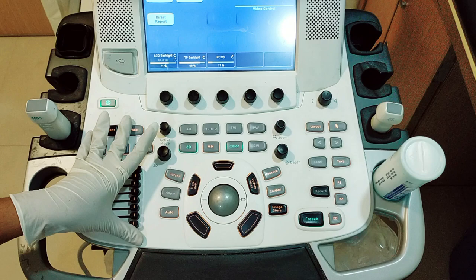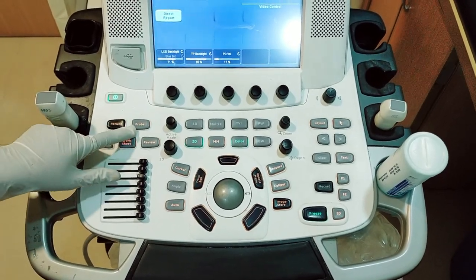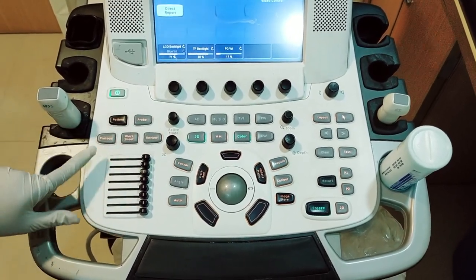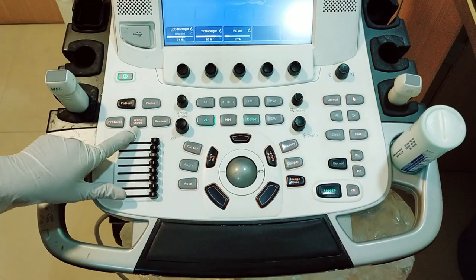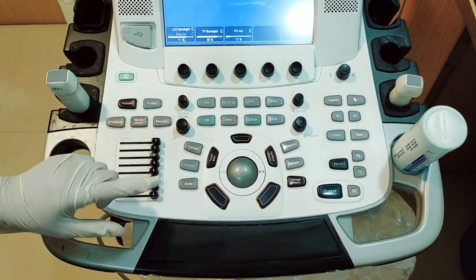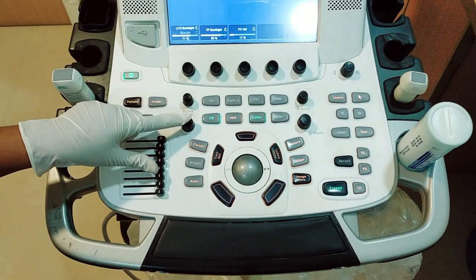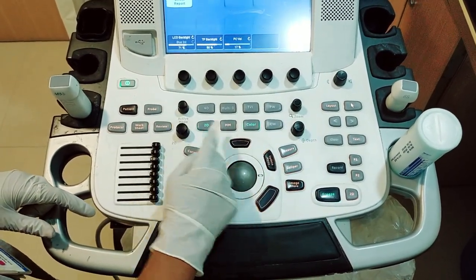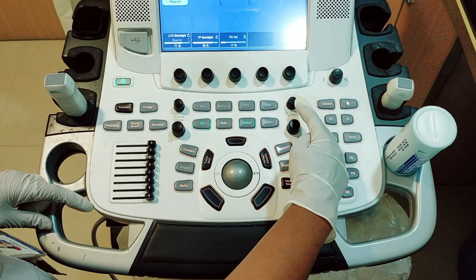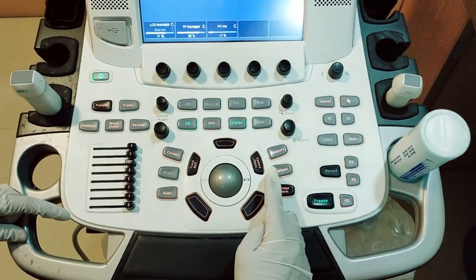Next, the control panel: on/off button, patient selection, probe selection, then this is the protocol-based acquisition, worksheet, then patient image review. This is the active mode gain, this is 2D mode gain, and then scan mode selection — this is all scan mode selection — zoom button, this is the depth, and this is all display controls.